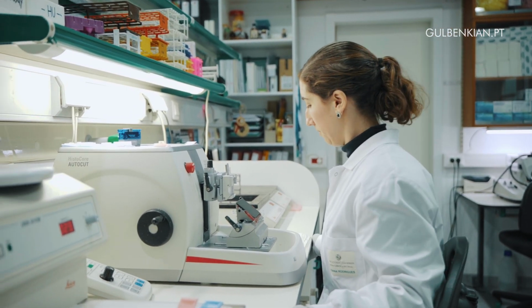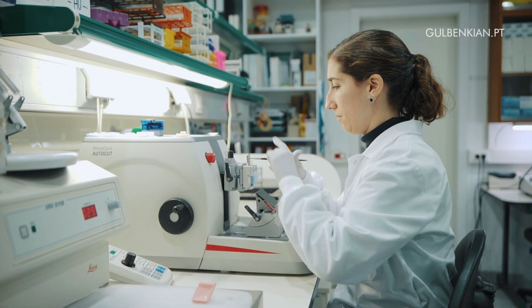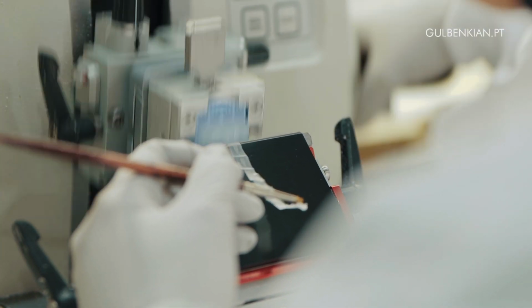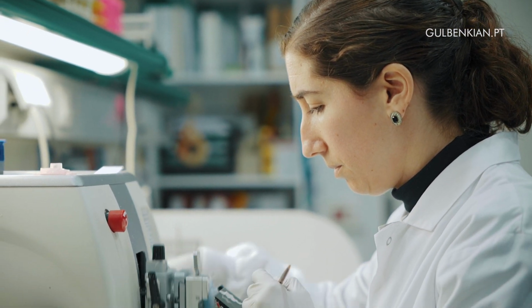In all of the hospitals, and mainly in our work in histopathology at IGC, most of the samples that we process are in paraffin. So this allows us to have a large biobank of samples where we can go back and look at them through a different eye using this technology, which is very, very important.